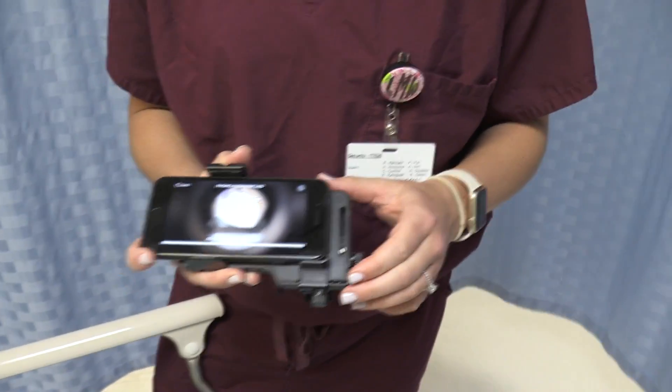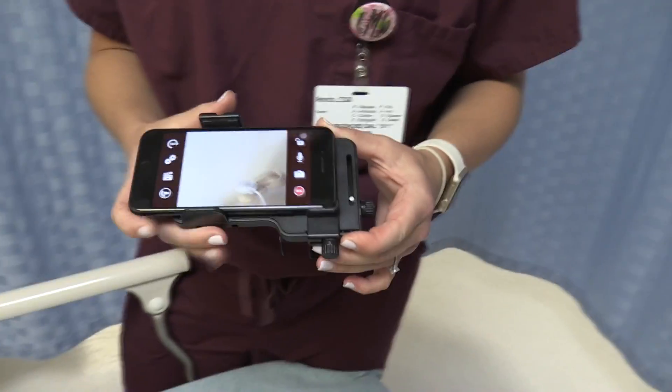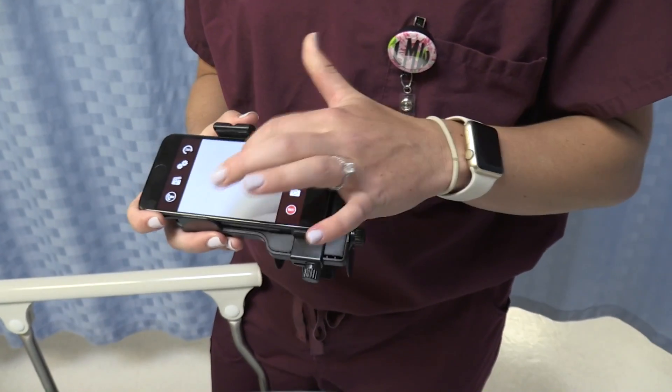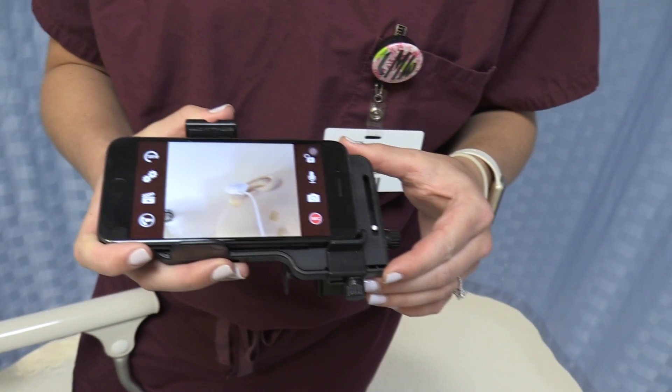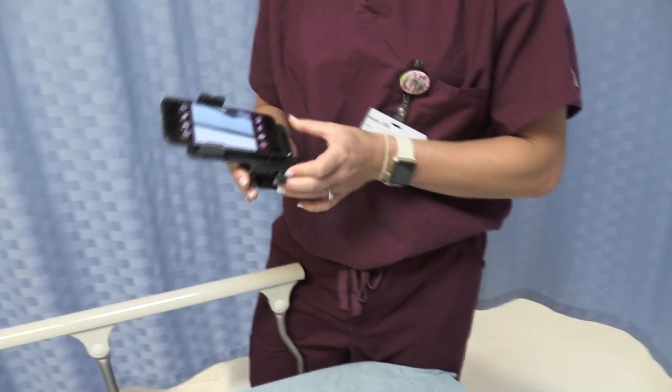You've already aligned this knob to make it easy for us. Hit back, and now you can see that the screen is focused and clear — a nice sharp image.